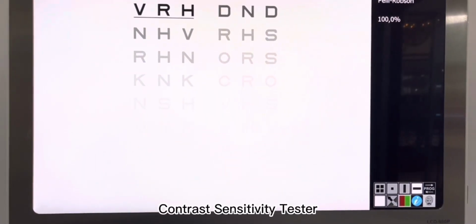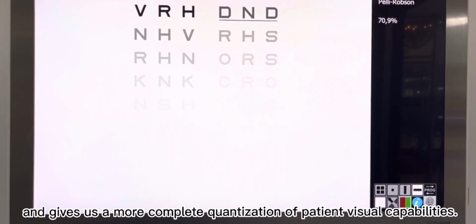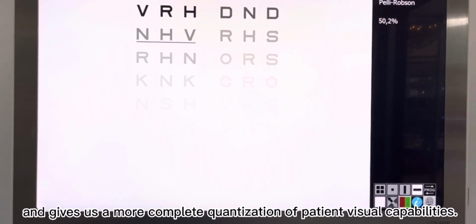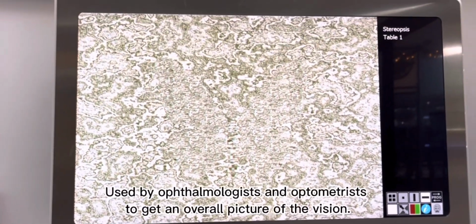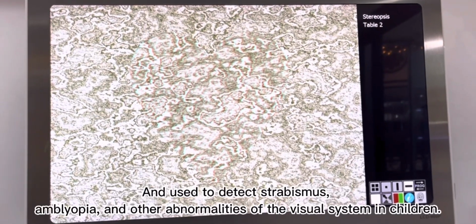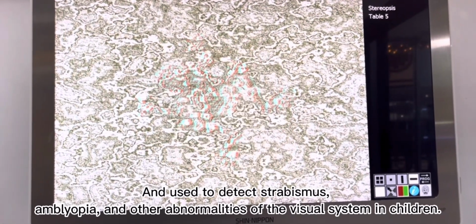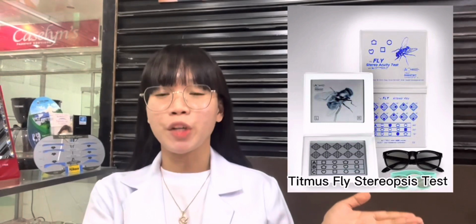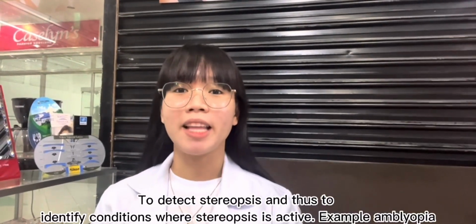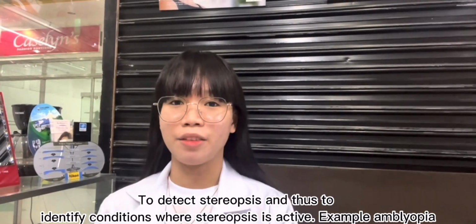Contrast sensitivity tester. It measures the least amount of contrast needed to detect a visual stimulus and give us a more complete quantization of patient visual capabilities. Stereopsis test, used by ophthalmologists and optometrists to get an overall picture of the vision and used to detect strabismus, amblyopia, and other abnormalities of the visual system in children.